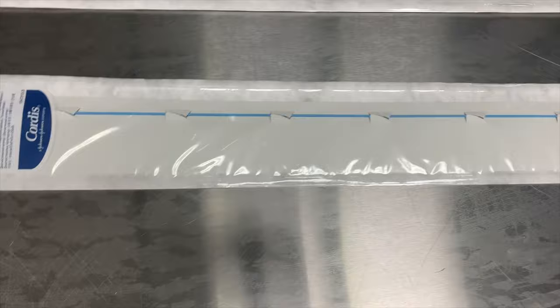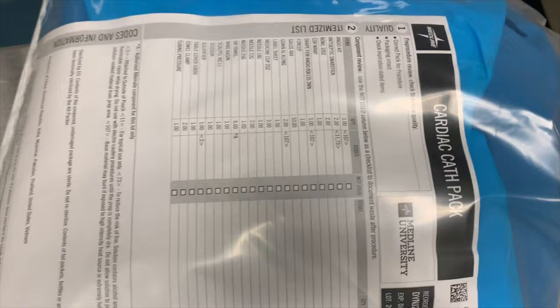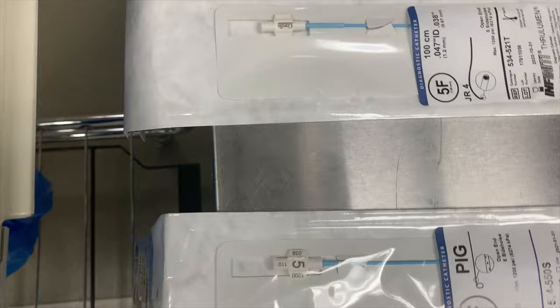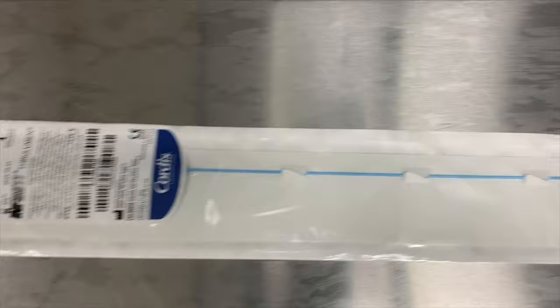The different types of catheters are used to accommodate viewing the different areas of the heart. They are named after Dr. Melvin Judkins — the standard catheters, the JL and the JR. The J stands for Judkins: JL is Judkins left, JR is Judkins right, and then there is the pigtail.